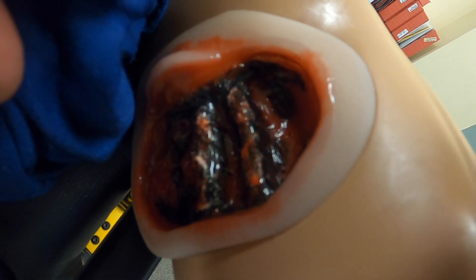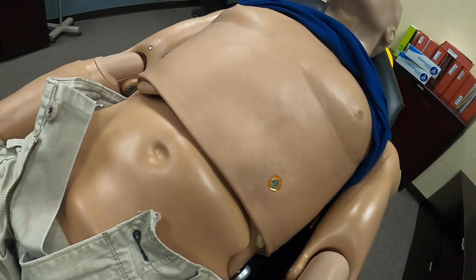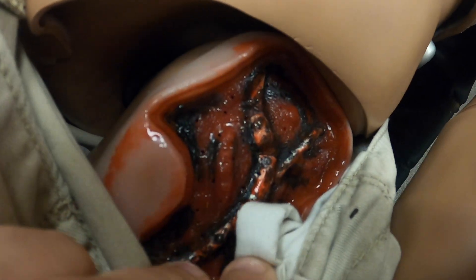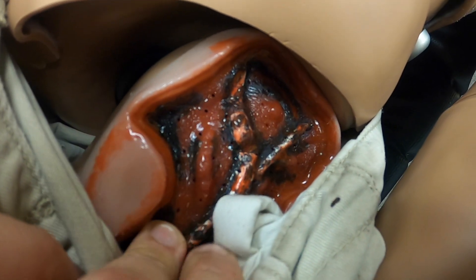On bilateral arms there are ports that can conduct bleeding, with pressure sensors underneath to make sure students are getting the proper amount of pressure to stop the bleed. Once it's secured, there are also groin bleeds on both sides — just like the axillary ones, with ports that will cause bleeding depending on the pressures applied.